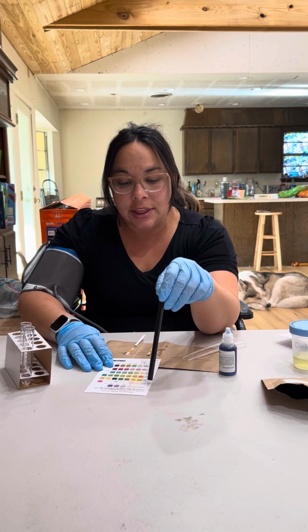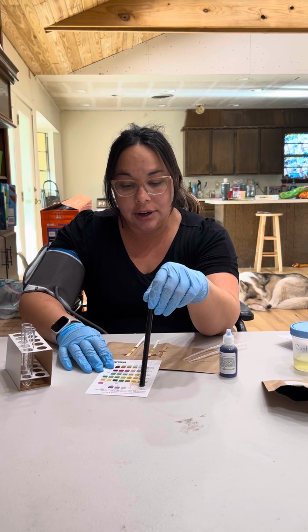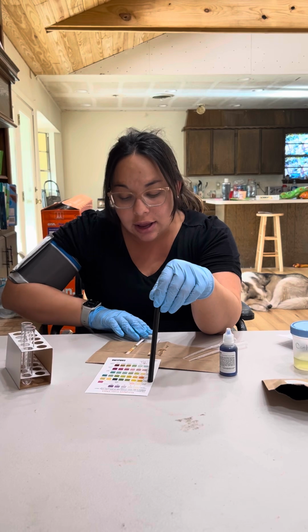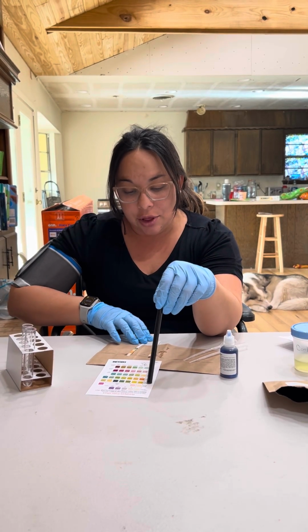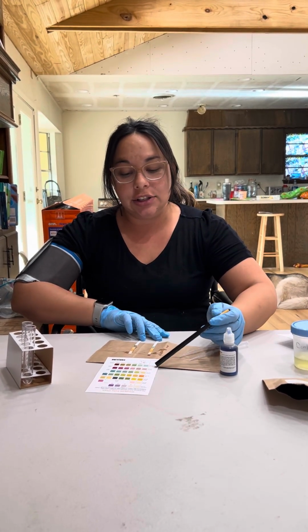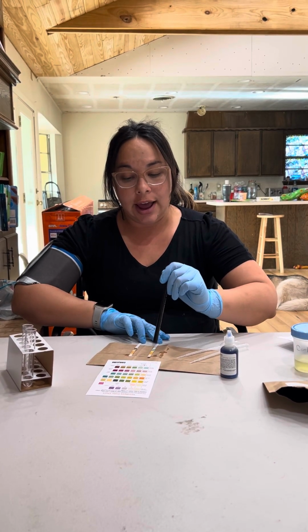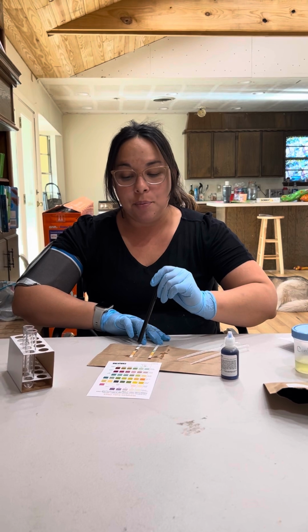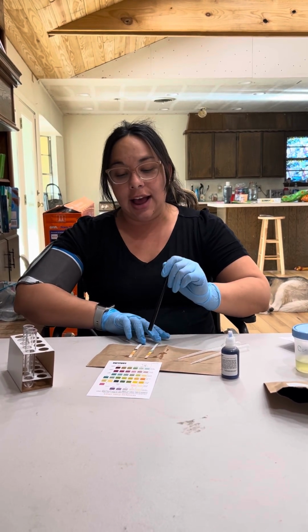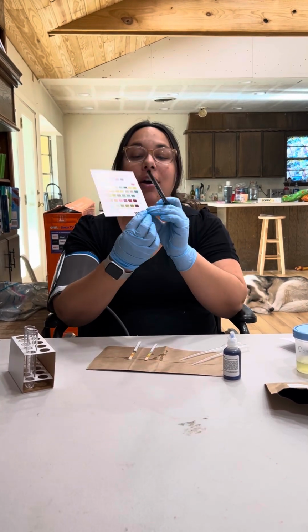The nitrite also looks similar. Blood in the urine, I have to wait a little bit longer for it to tell. The one that's really sticking out to me the most is the glucose in the urine. The control has none, but the unknown A has a higher amount of glucose. Like, it's all the way on the end over here.